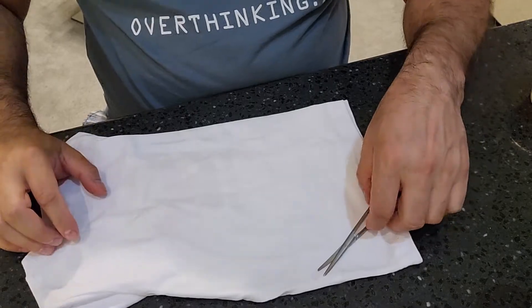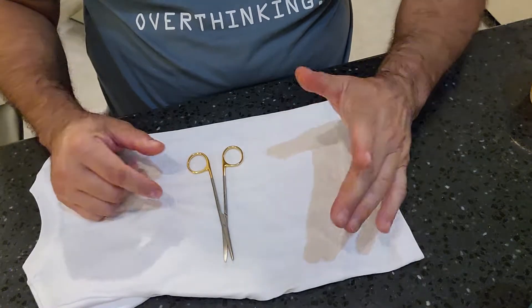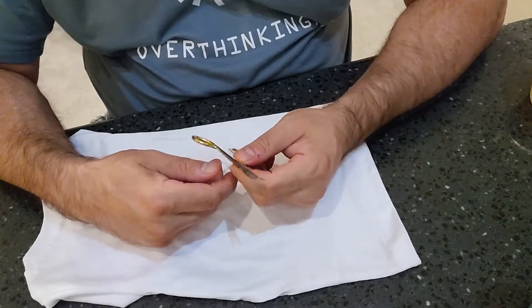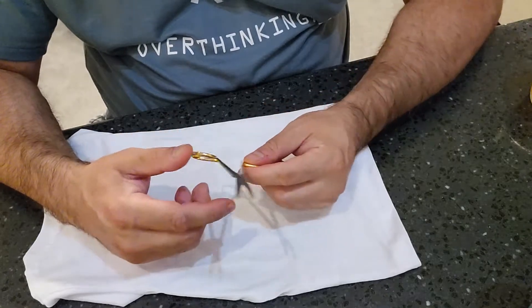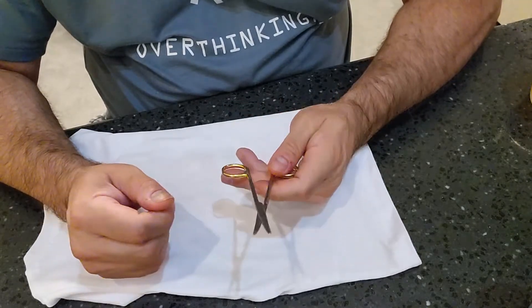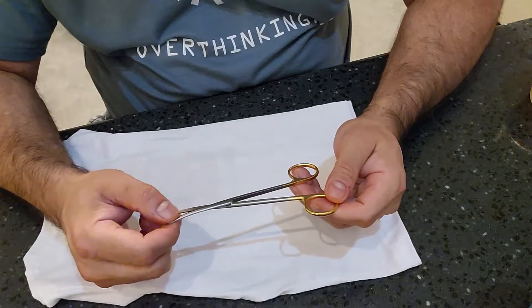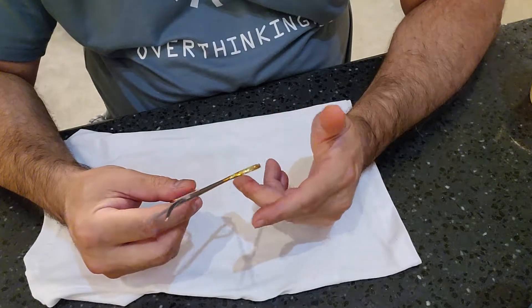Welcome back to part four of inspecting basic instruments. It really doesn't matter if it's part three, four, or five — we are inspecting and testing basic instruments. In this series, we're digging out scissors. So what do we know about scissors? Well, aside from identifying the vast majority of scissors we use in sterile processing and surgery, the components are basically the same as a forcep.